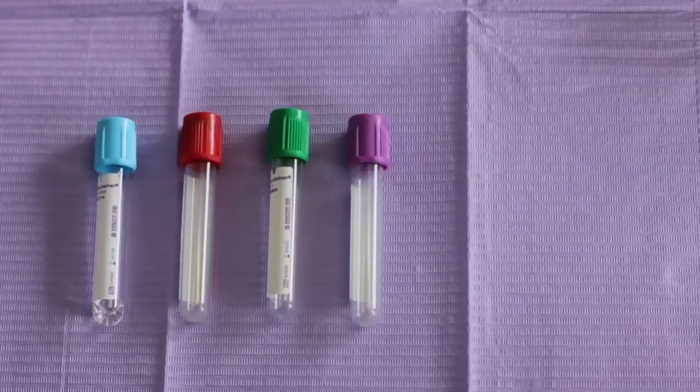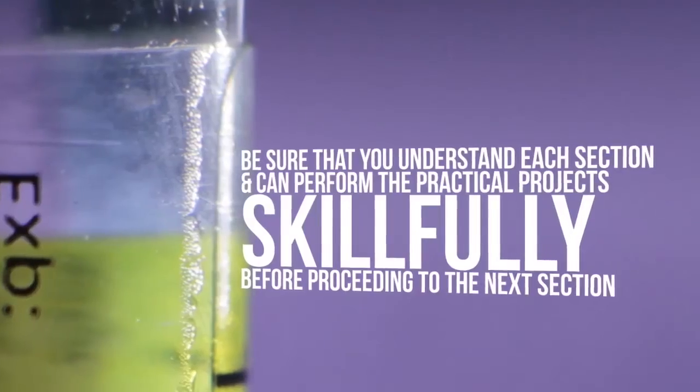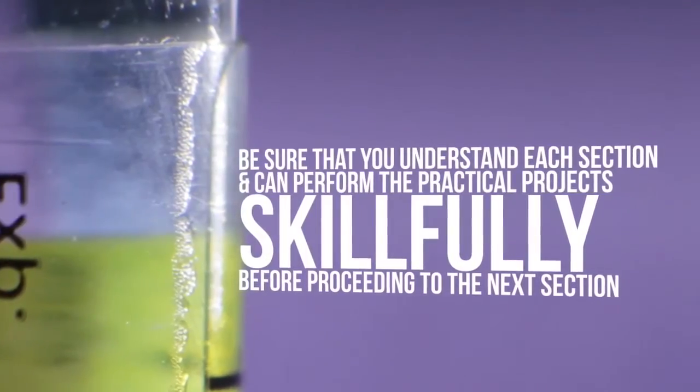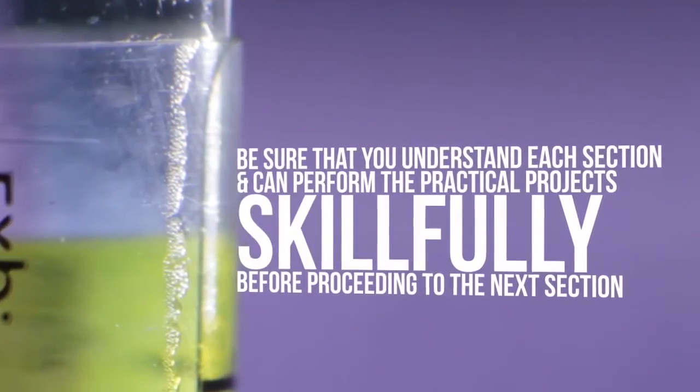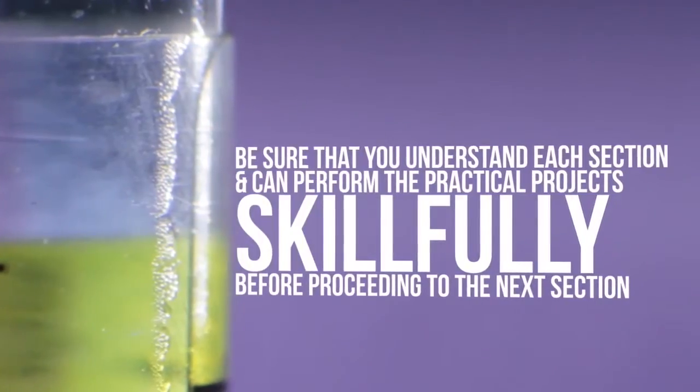Work systematically through the course material. Be sure that you understand each section and can perform the practical projects skillfully before proceeding to the next section.